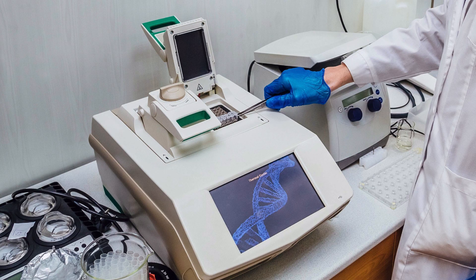Because time is of the essence during a pandemic, many companies have developed newer RT-PCR kits that can produce results in as little as 15 minutes, although many of these still need to be validated.